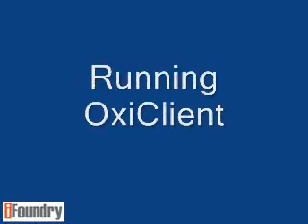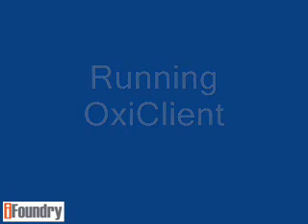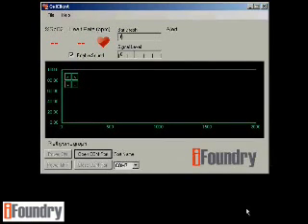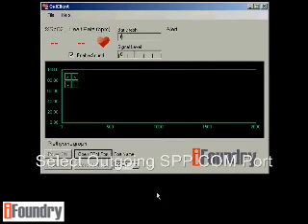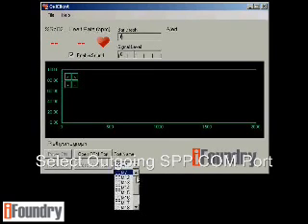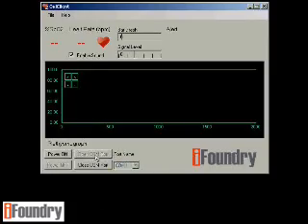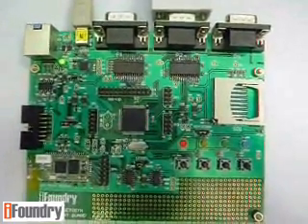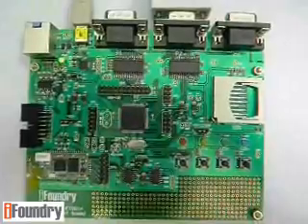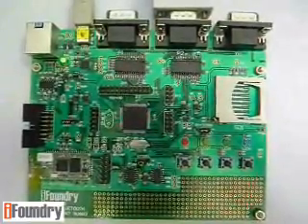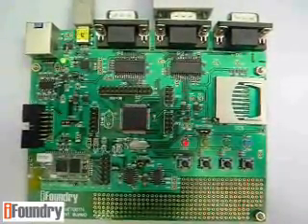Now let's run the OxyClient. Select the port name — this should be the outgoing SPP COM port created during the pairing process. Click open COM port. You will now notice that only the red LED is blinking and the yellow LED is off, which means that the SPP connection is already established.